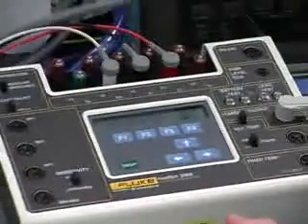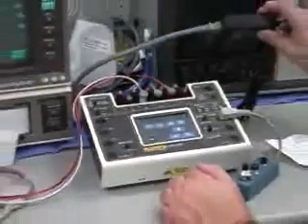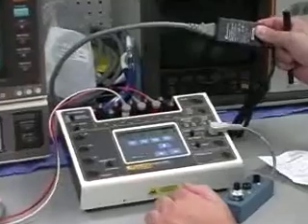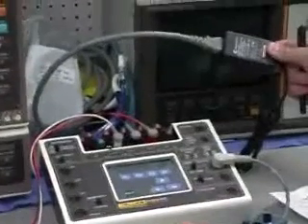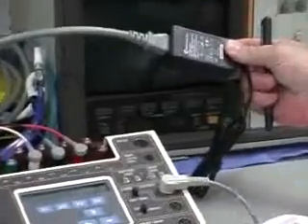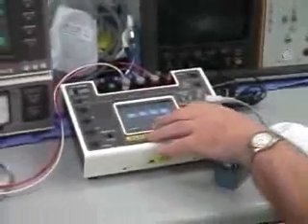Like I said before, we've standardized with these types of battery eliminators, so that they will be good worldwide. It's 50, 60 hertz, 100 to 240 volts. And we did pay extra to get the Japanese certification on those also. So like I said, it's pretty much everything. You've got the capabilities on that.